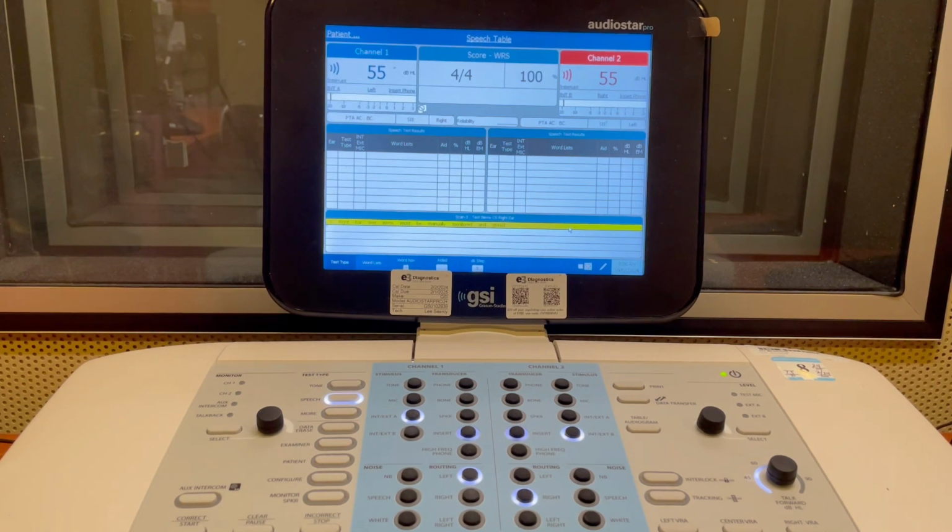And you do want to run this test with the competing sentences right ear directed and then left ear. It doesn't matter if you do left ear first or right ear first, but I'm not sure actually if it matters or not. I would say do it right ear first and left ear second because that's the way it's set up in the manual, but I'm sure it doesn't make a huge difference. And then you want to run them both because that's how you're going to score it.